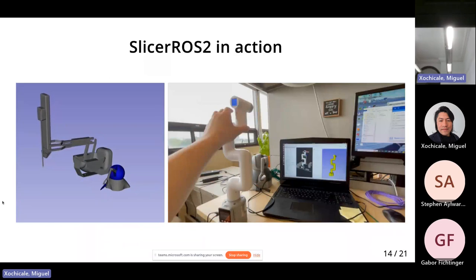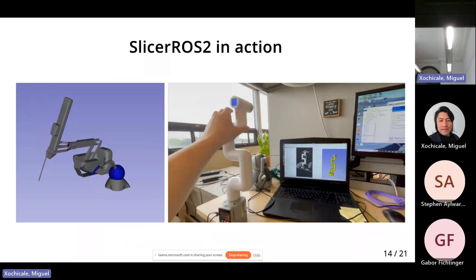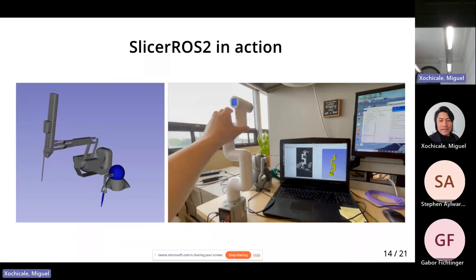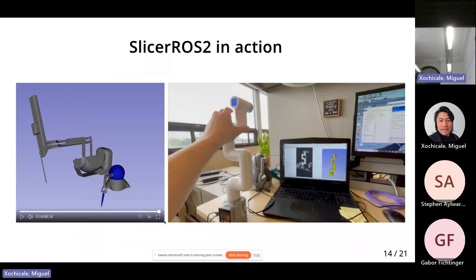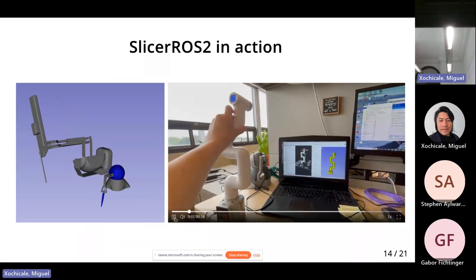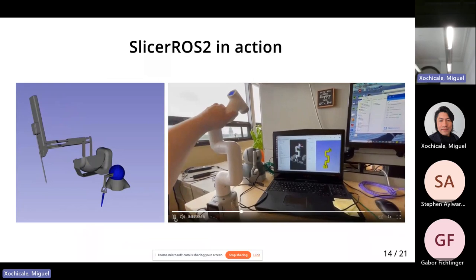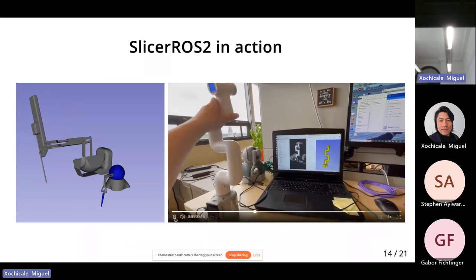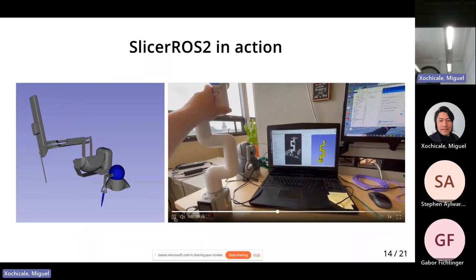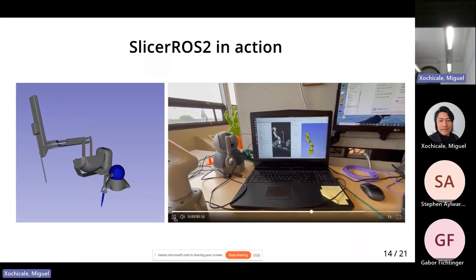What we can do with that is essentially load and visualize robots in real time with the click of a button. What you're seeing here is the patient side manipulator of the DaVinci Research Kit, that small desktop robot, and on the right a very inexpensive robot called the Cobot by Elephant Robotics. If you have a ROS-supported robot — meaning you have a universal robot description format, which is pretty standard — and a robot state publisher, you can get this up and running for your system with a button click.